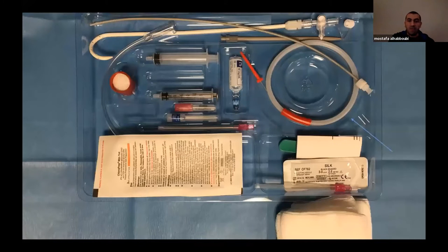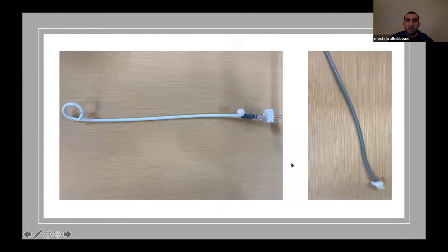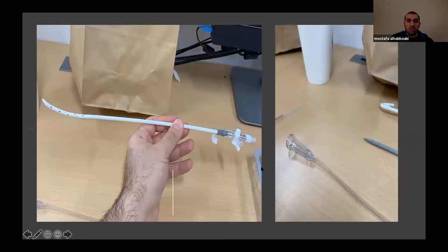The components of the kit are: the needle — which can be short or long — used to get in and thread your guide wire; a syringe; a short blade; a guide wire; a dilator; the pigtail itself; and a stiffener for the pigtail. When you put the stiffener in, it will not be completely straight but it won't be curved. At the end, you have a connector: one part connects to the chest, to the Pleurevac or Heimlich valve, and the other part connects to your pigtail.